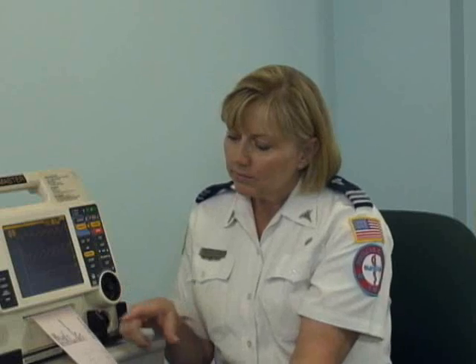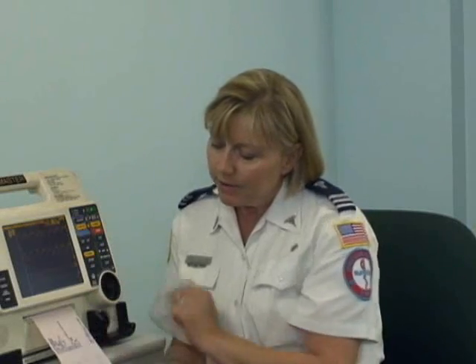If you've done a 12 lead and you notice that you're going to call this a STEMI, two things need to happen. If you've not entered the patient's information, make sure that gets done and contact med control for our STEMI patients. Here you'll see that the transmission has been completed, and it'll give you all of the information, including the fact that the patient's name and the 12 lead went through to the PCI facility.